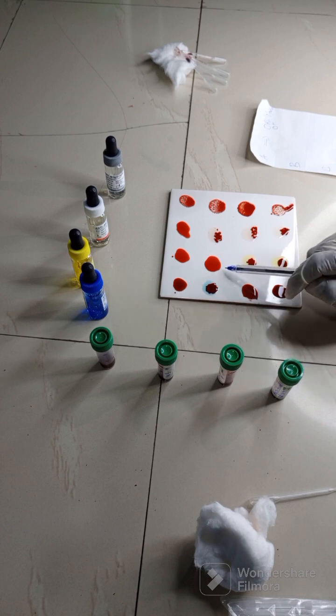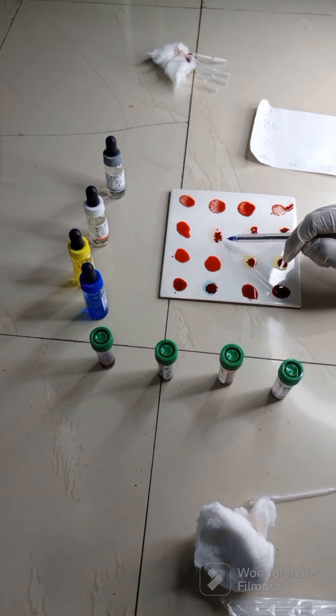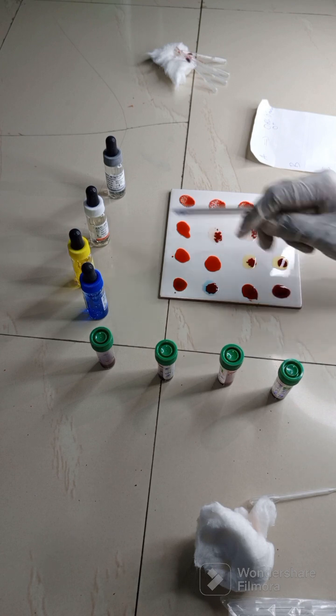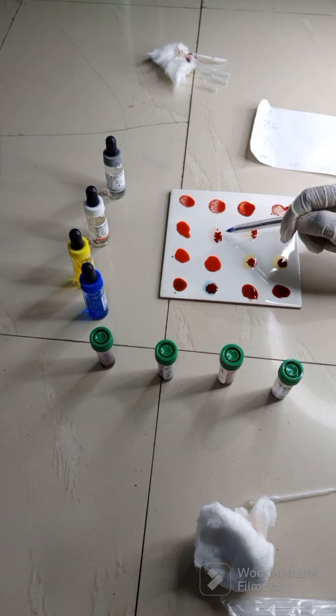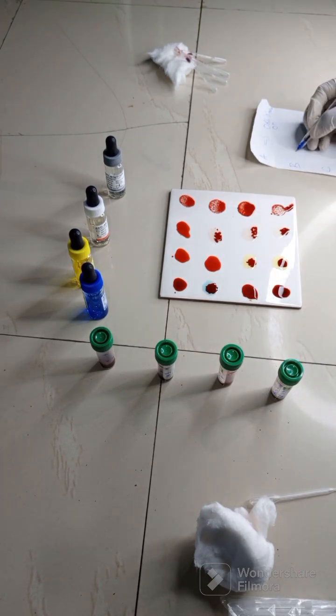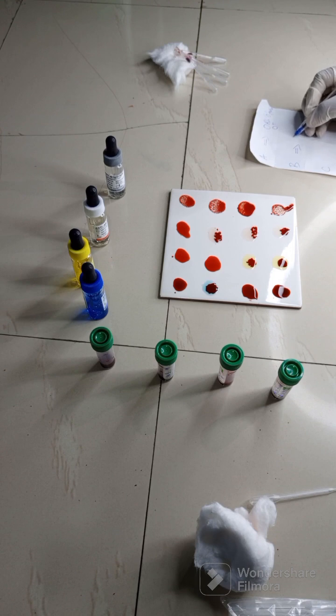There is no reaction in B, but we can see reaction in AB because AB contains both A and B. So the A antigen portion of this AB has reacted with this to give us this clumping. So this person's blood group is what? Yes, what do you call it? It is A rhesus D what? Positive. Okay, can we see that?